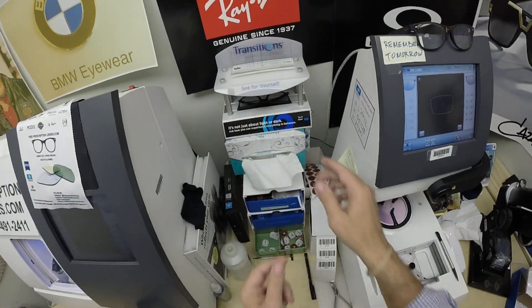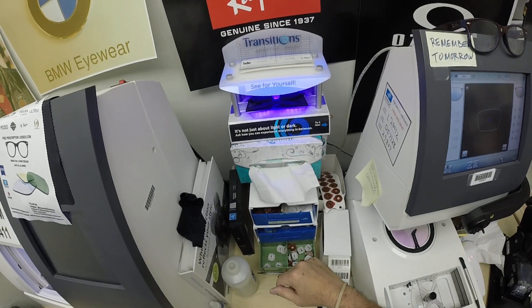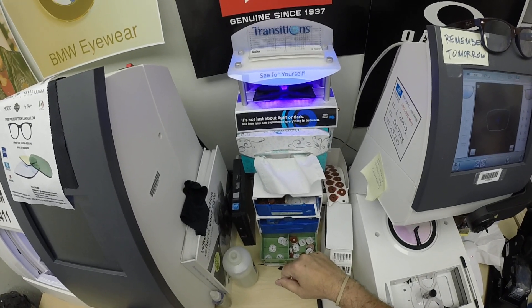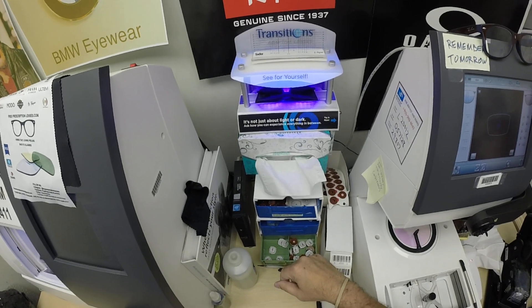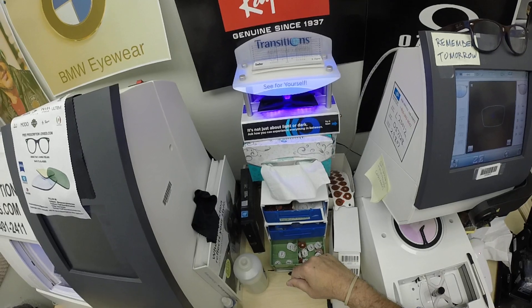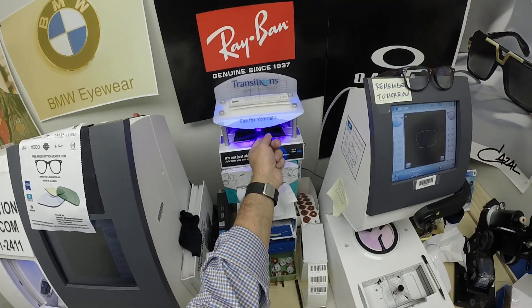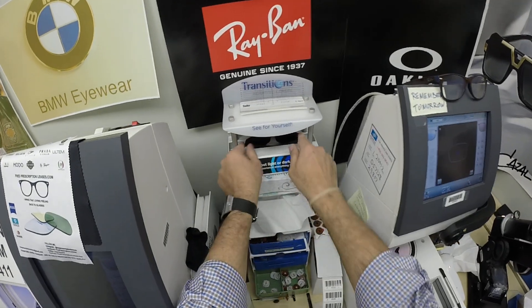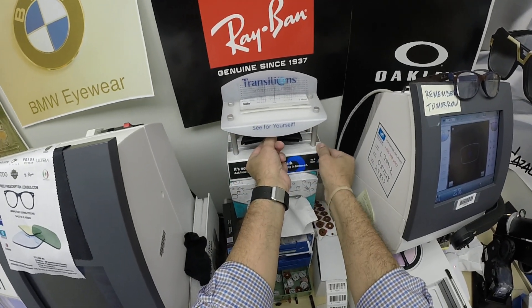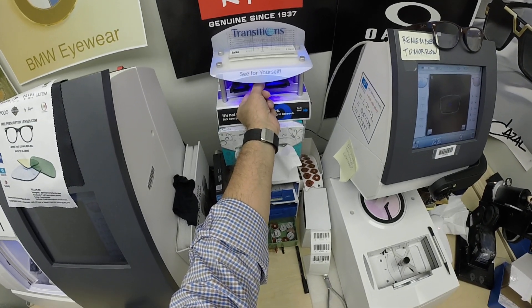Let me go ahead and give them a strong burst of ultraviolet light so you can see what they look like outside. Now all photochromic lenses will turn dark on day one and continue to darken every day for the first couple of weeks when exposed to the sun. After that, they will work for years at maximum performance. The only time they won't work is if you're behind the windshield of a car. Your windshield absorbs the sun's harmful ultraviolet rays — that's why they don't turn dark in a car.